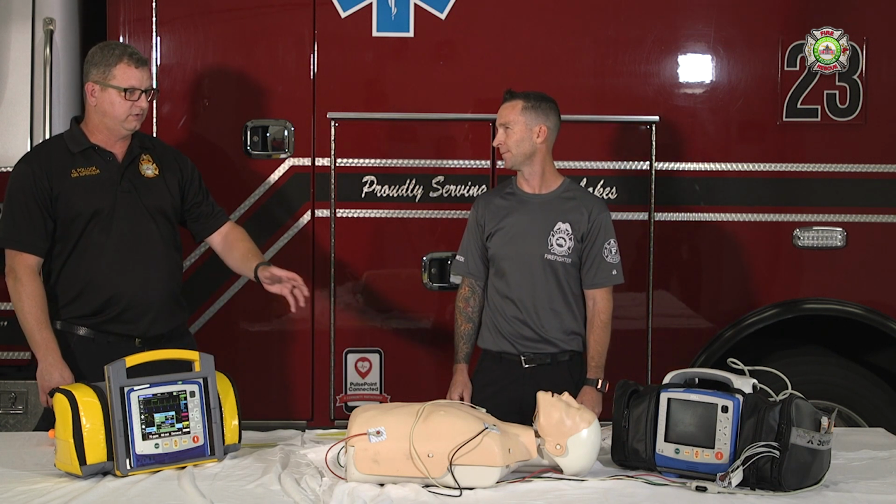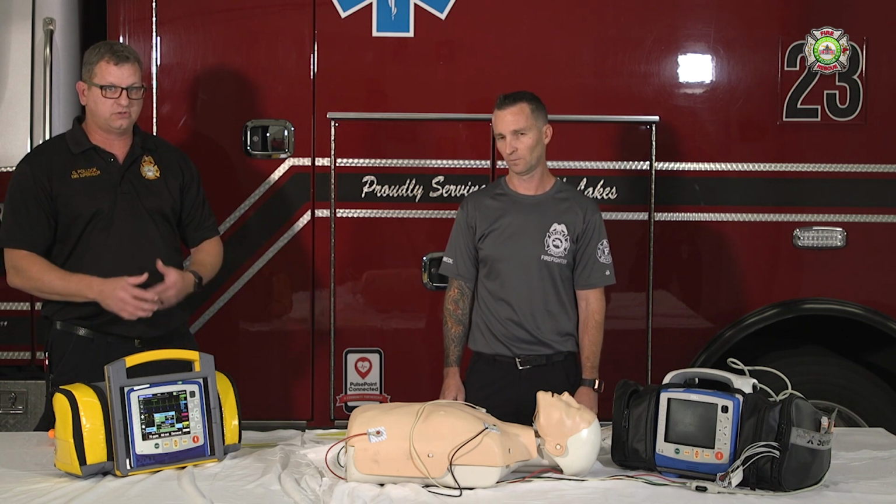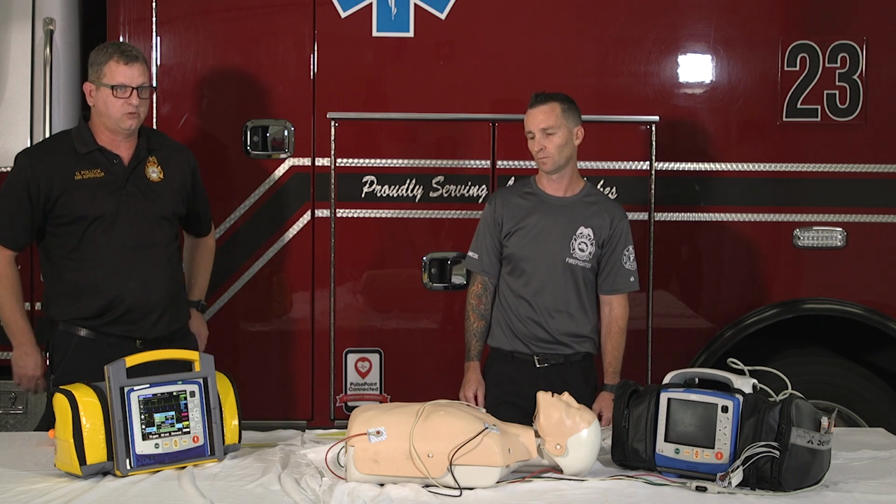And with anything else, if you do have a problem with the monitor, or it fails on something, or any other medical equipment for that matter, make sure all the proper paperwork is filled out and directed to the appropriate people.